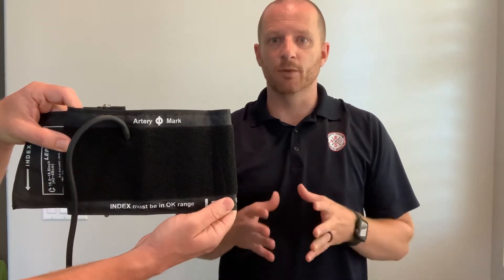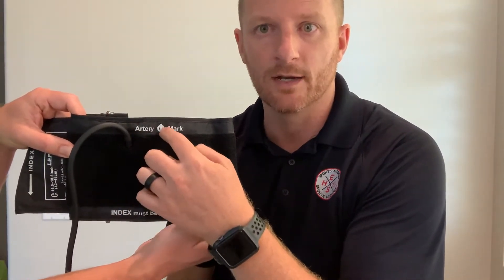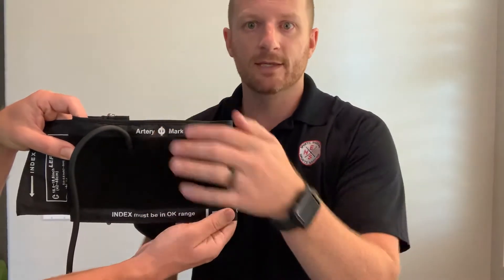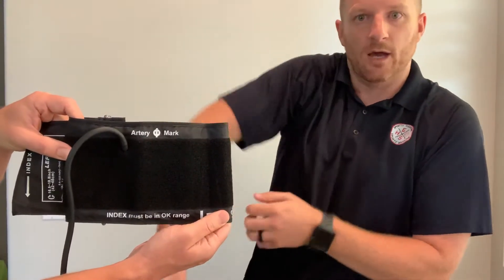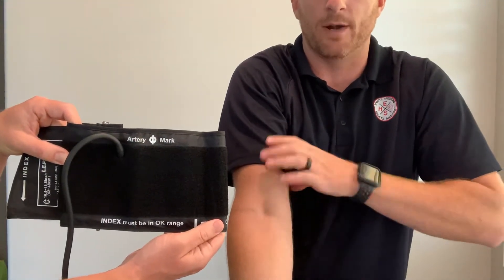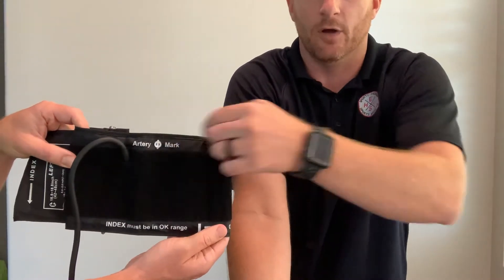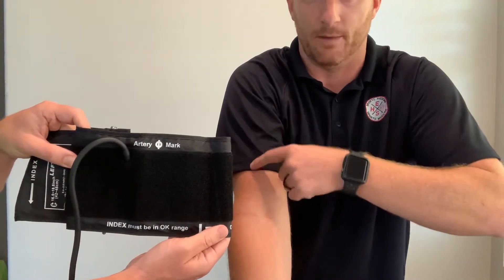I'm going to show you how to take a blood pressure using my digital blood pressure cuff. This is the actual cuff, and as you can see it has an artery picture right here that says 'artery.' This is where my arm goes through the cuff — I want this part to be on the anterior side of my elbow, around my bicep, so this artery line is right on the front side of my bicep.